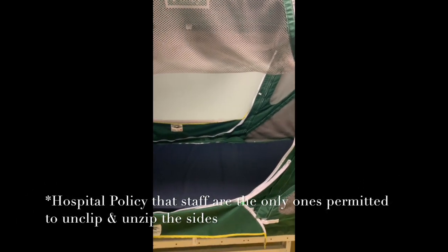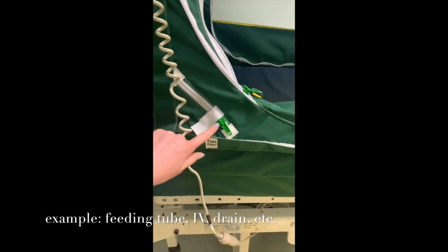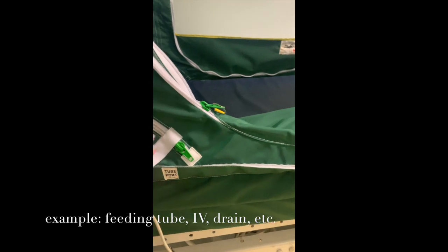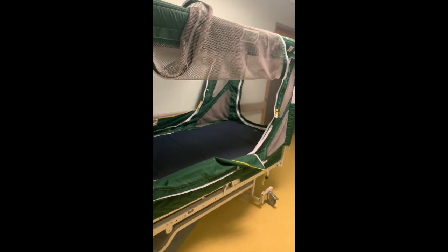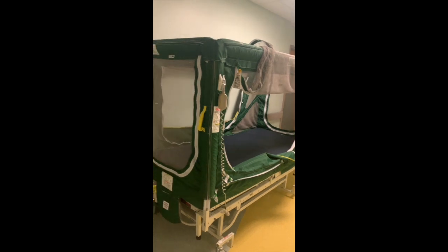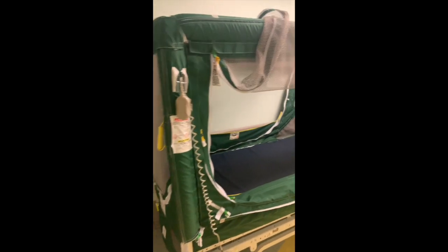If we need to, we can run lines through zippers in the bed, so even though it will be zipped all the way up, if you look right here, this zipper compartment would be a port for a tube or something to be run in through, to be attached to the patient. This is considered a restraint. We do need an MD order. Those orders have to be maintained. The patient must be closely monitored while they're inside this bed.